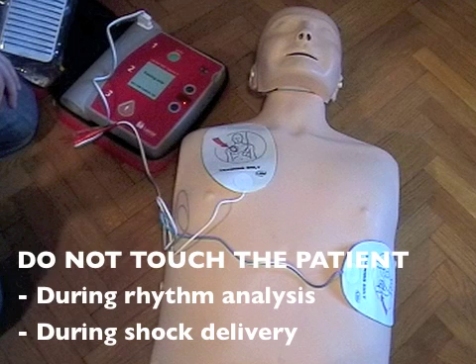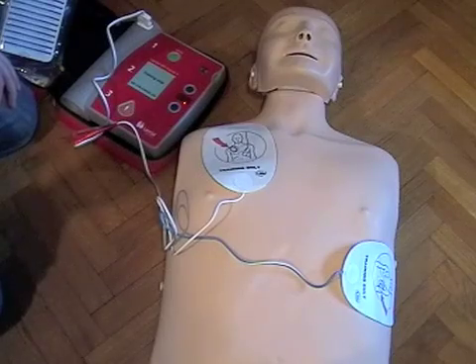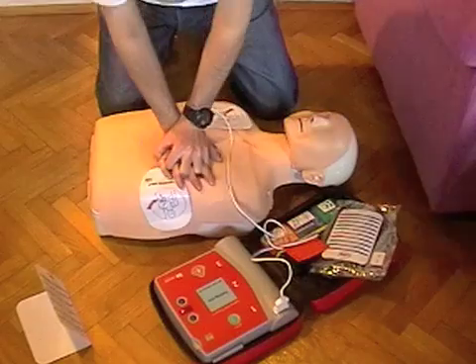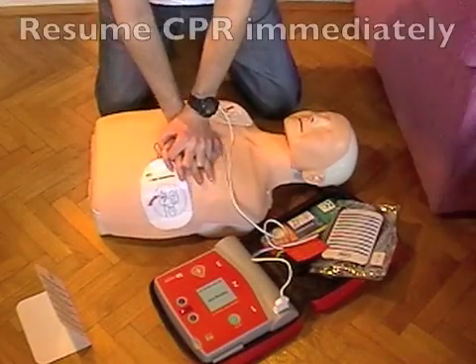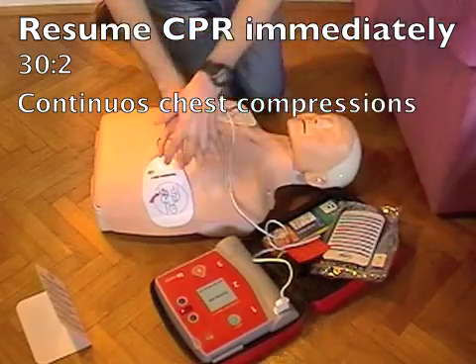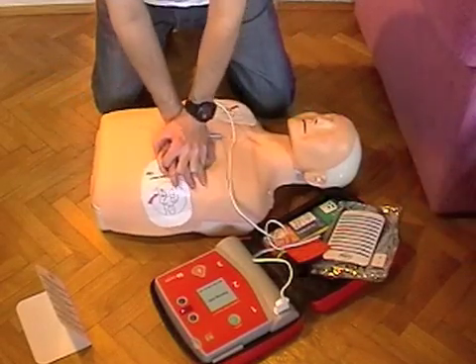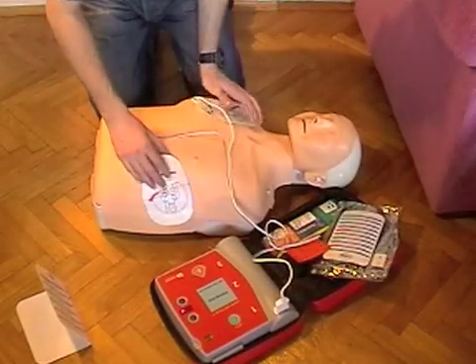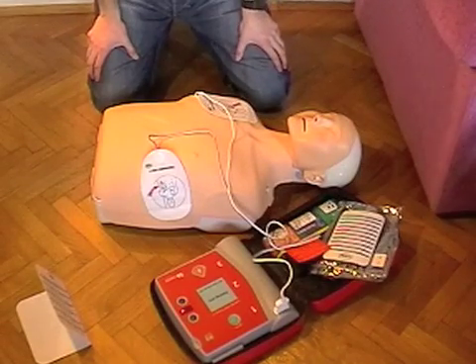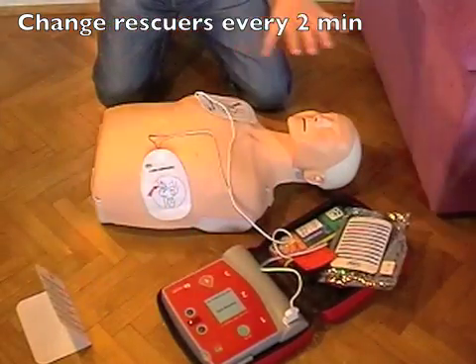After shock is delivered, if you are untrained, unable, or unwilling to deliver rescue breaths, perform continuous chest compressions without stopping. After a certain period, typically after 2 minutes, the AED will again advise you not to touch the patient and start analysis all over again. Keep following its instructions and delivering CPR until professional help arrives or the victim starts showing signs of life like breathing or moving. If possible, change rescuers every 2 minutes because the task of performing chest compressions can be rather tiring.